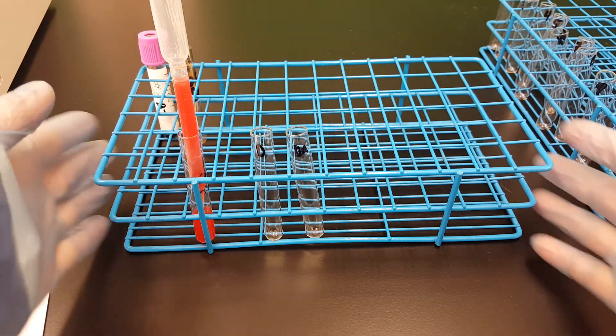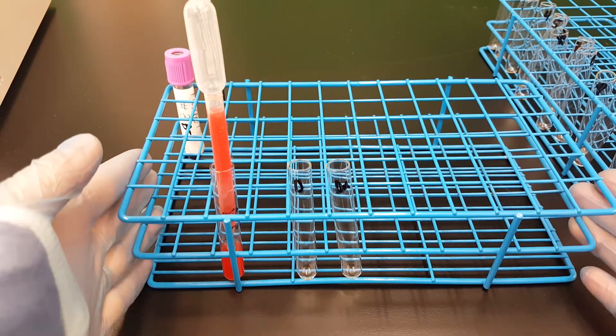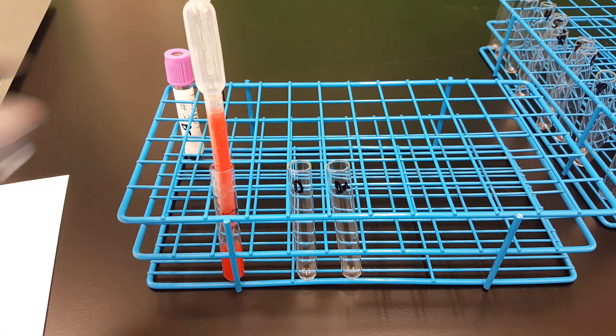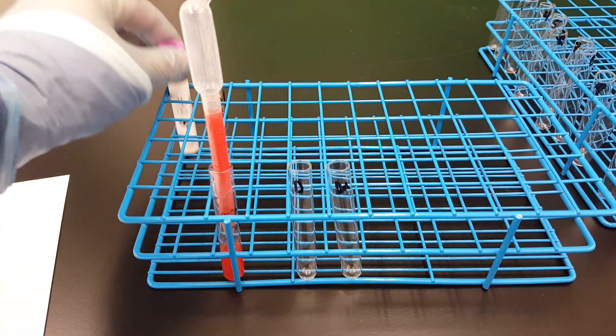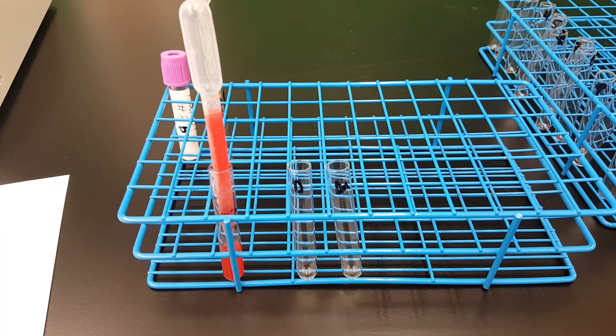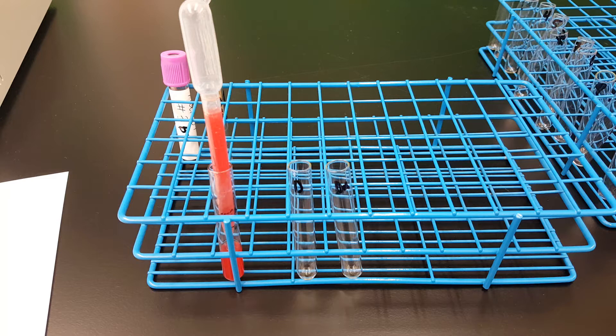Hey everyone, today we're going to be talking about weak D. If you remember, the specimen that we had was D negative. I didn't run a D control next to the anti-D because I didn't think about it at the time.